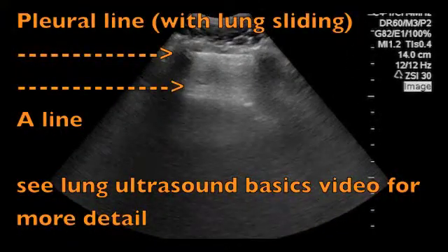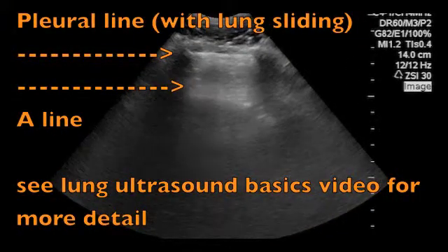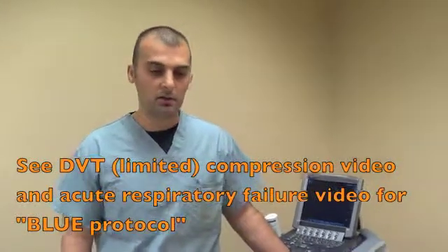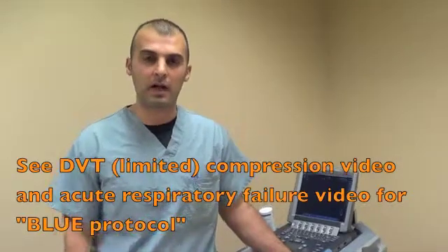If you were to look at the anterior chest and identify an A-profile — which would mean A-lines on bilateral sides — to exclude other causes of an A-profile, you would need to proceed to a DVT scan. With an A-profile, you could have COPD or asthma, but you could also have pulmonary embolism.